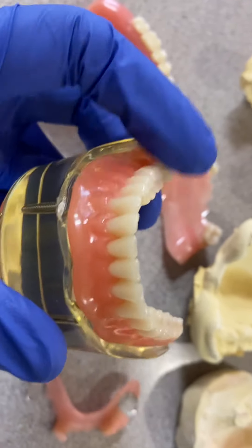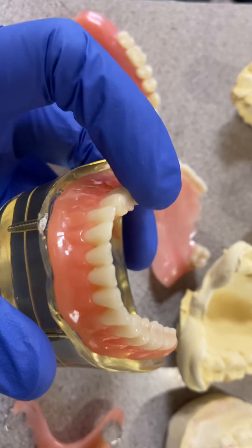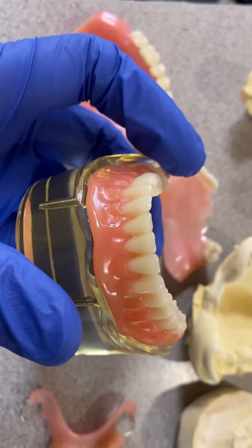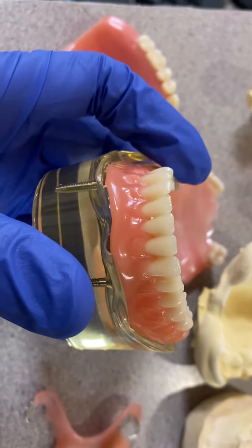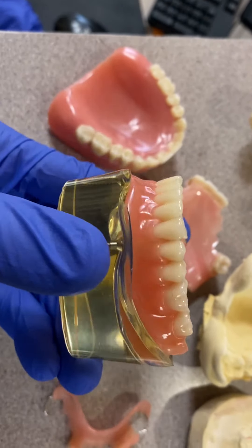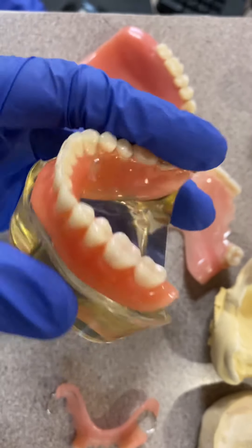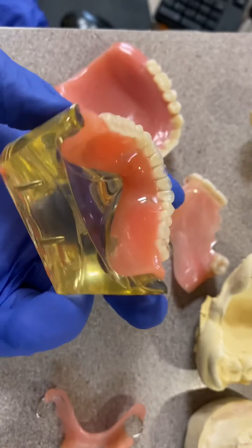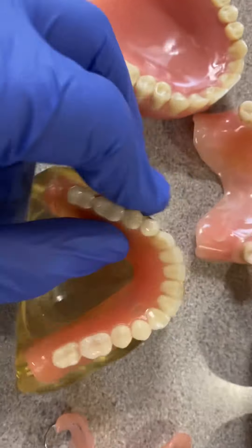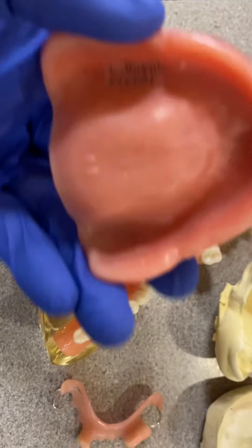Especially on the bottom, if you're losing all the teeth, this really helps when you eat, chew, and move your tongue around — the denture doesn't come out or even when you talk. So implant over denture is a great thing to have if you're able to afford it.